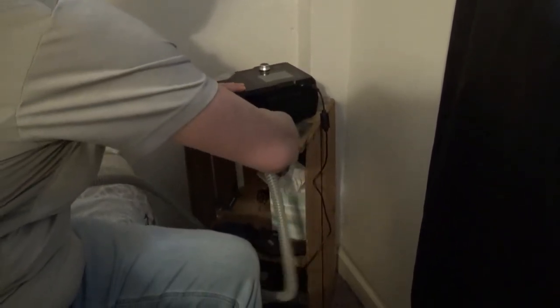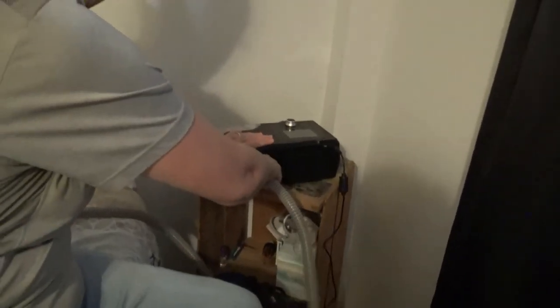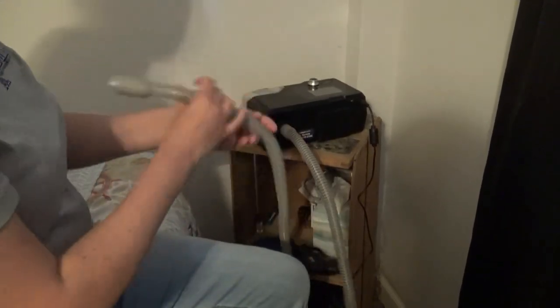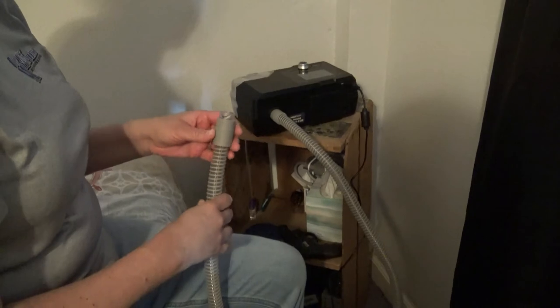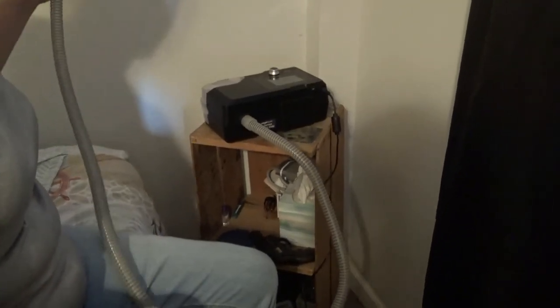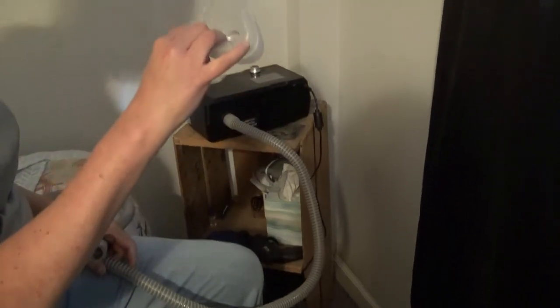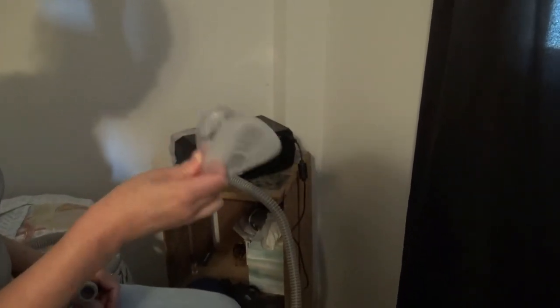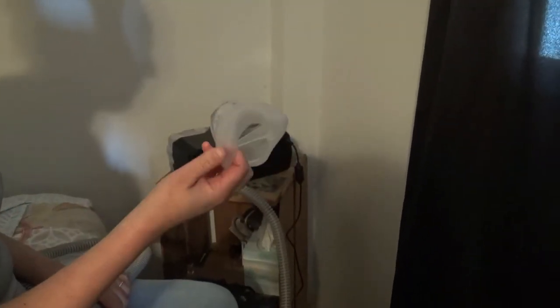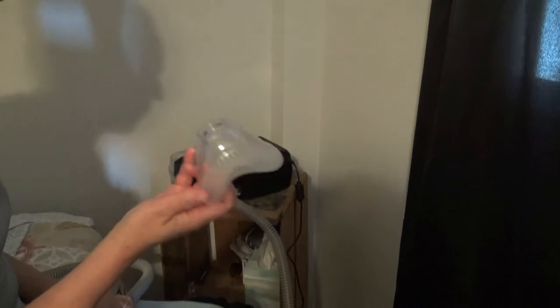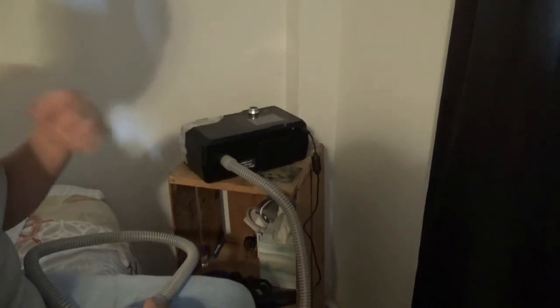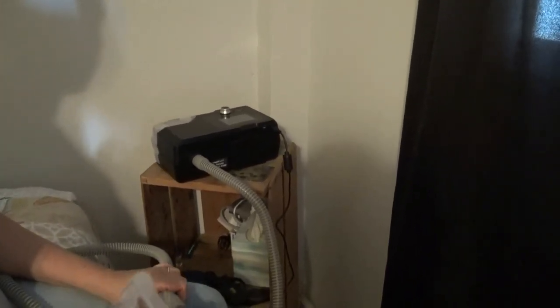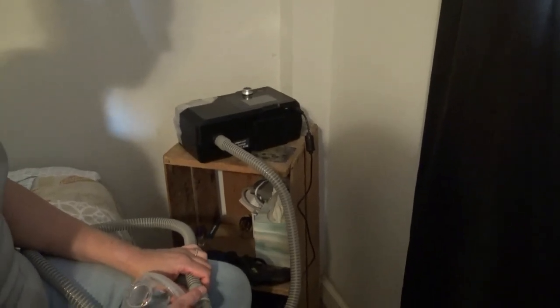Your tube should be easy to unplug from your machine because you can wash your tube too to keep it sanitized. You're supposed to wash the water basin daily and the tube weekly. That's usually what I do - I'll put the tube and the face mask and the top in the sink full of soapy water and let it sit for five minutes once a week. You can definitely wash your face mask more often if you want to, and your tub definitely wash that on a daily basis.